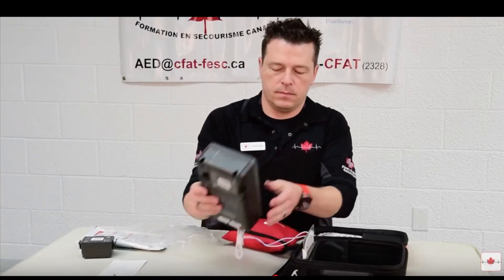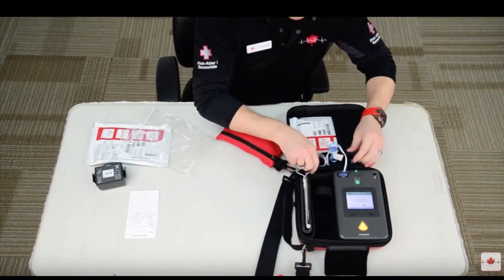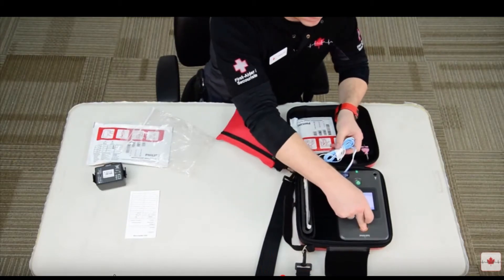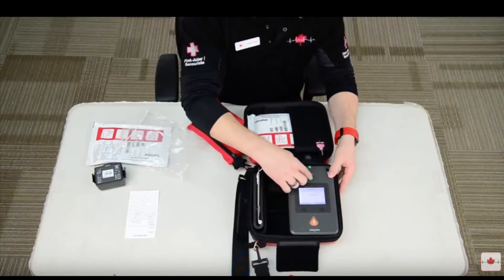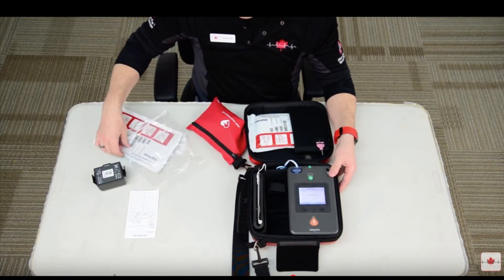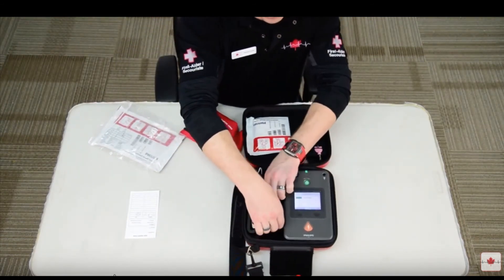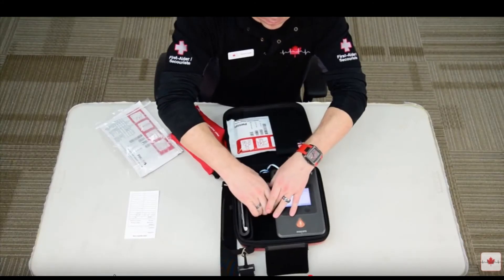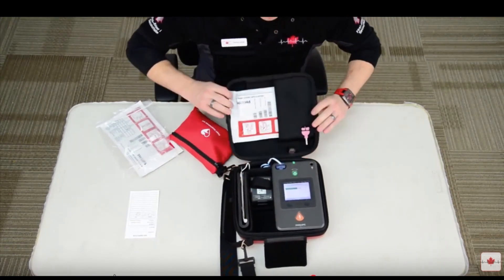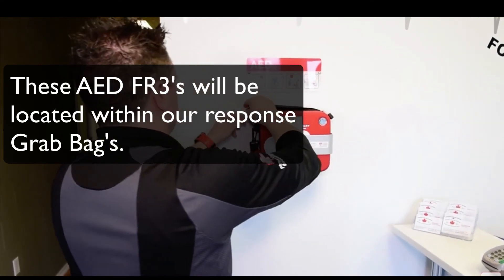Press the top end down until the battery clicks into place. Please put the AED back into its protective red casing or hard case. Since it's best practice to have two sets of electrode pads, you may also consider having a spare battery. The spare battery should be beside the AED in the red carry case. Please be aware that a new battery is good for three years from the date of installation. Close the red carry case lid, and then place the AED into the wall-mounted bracket or security cabinet.